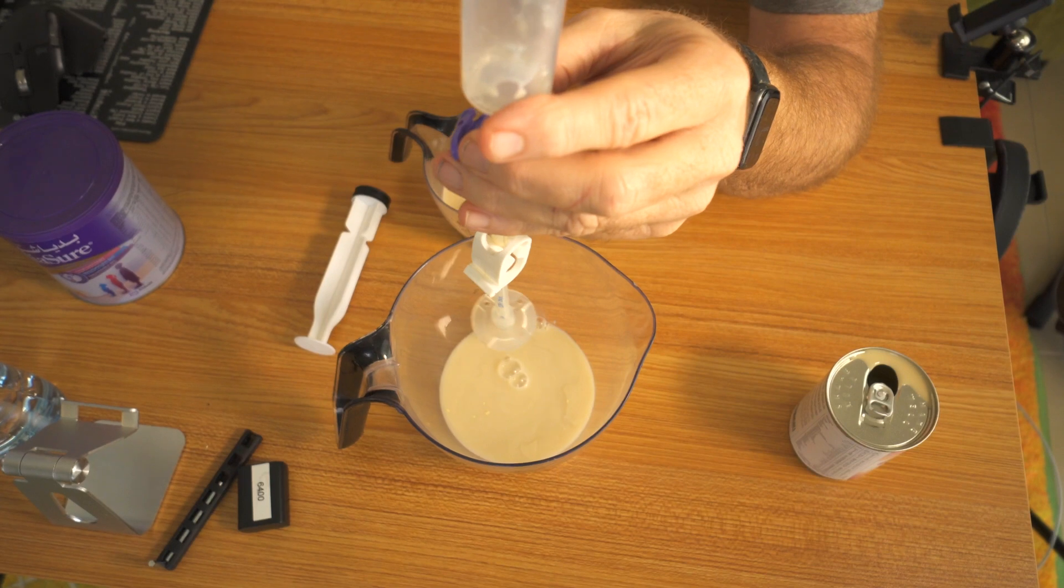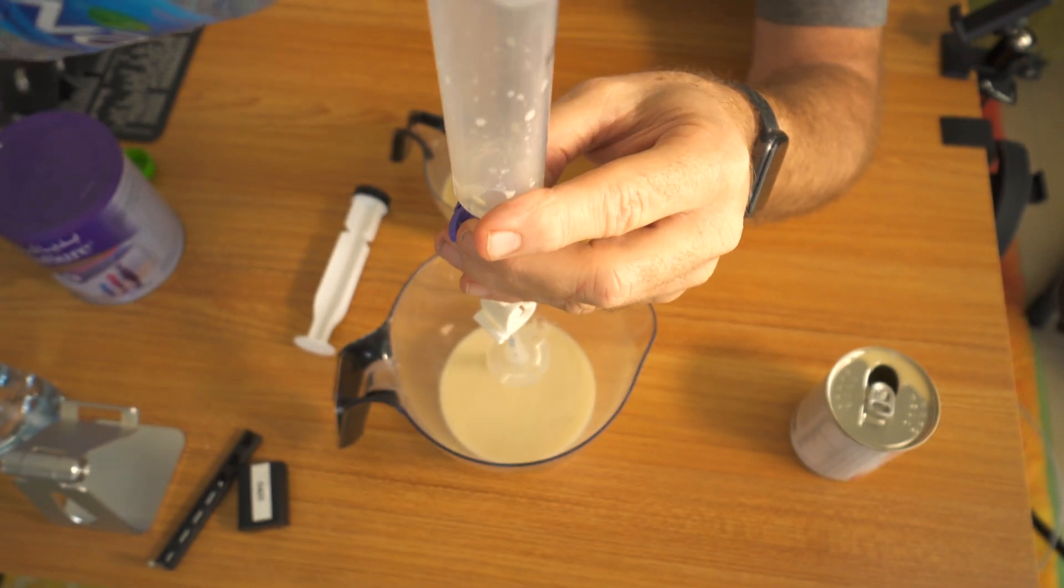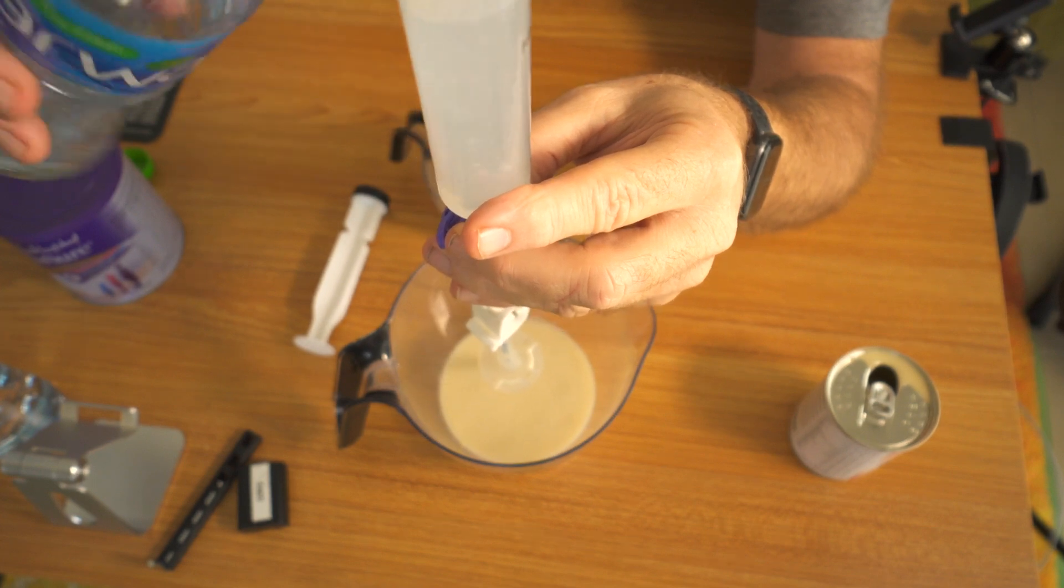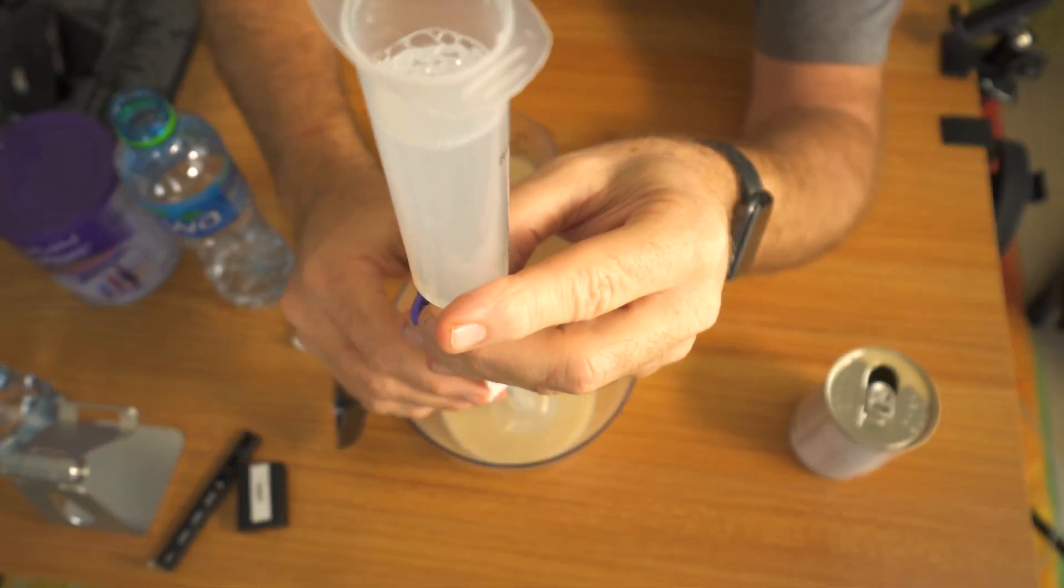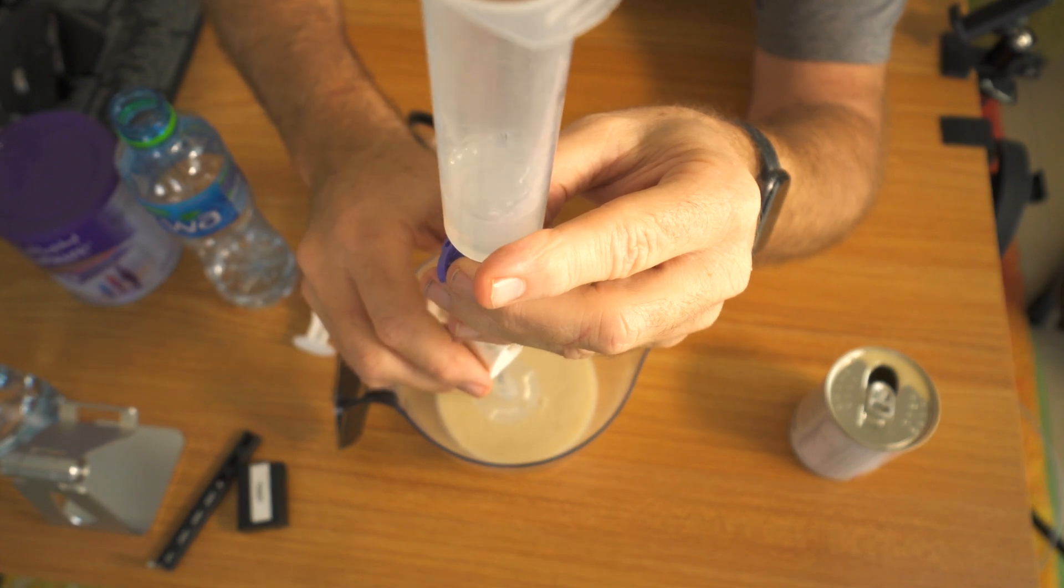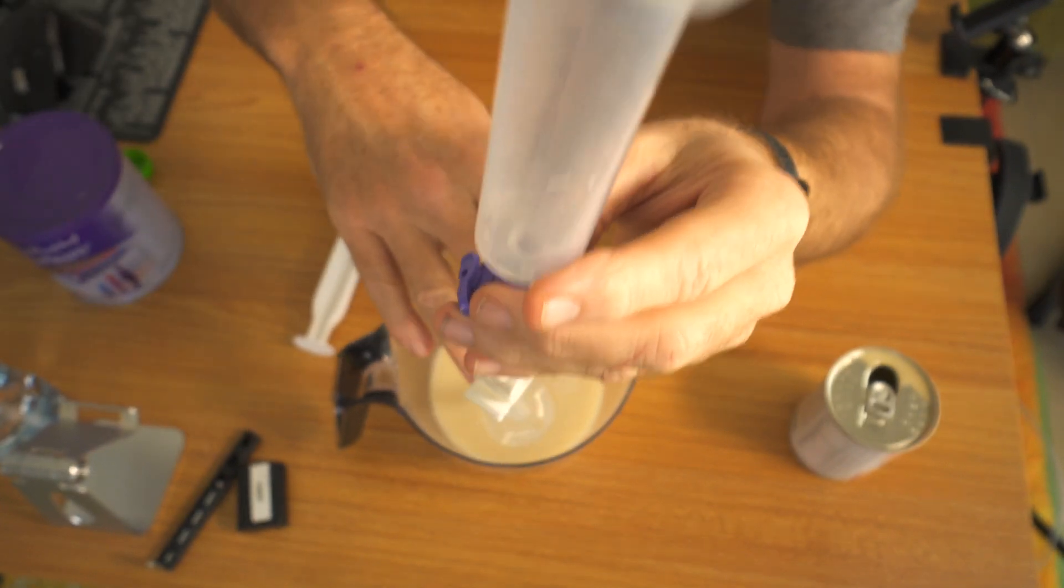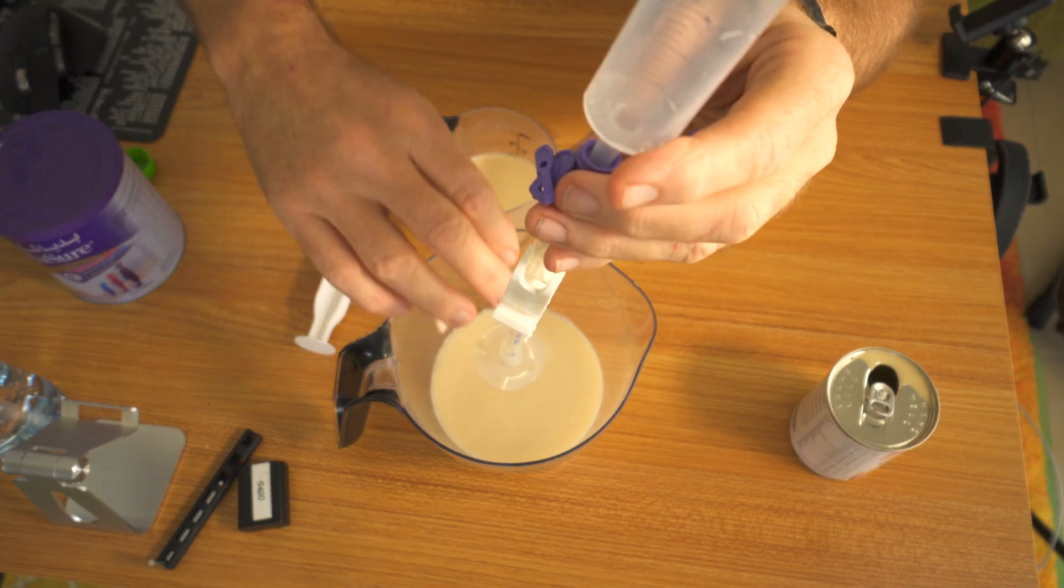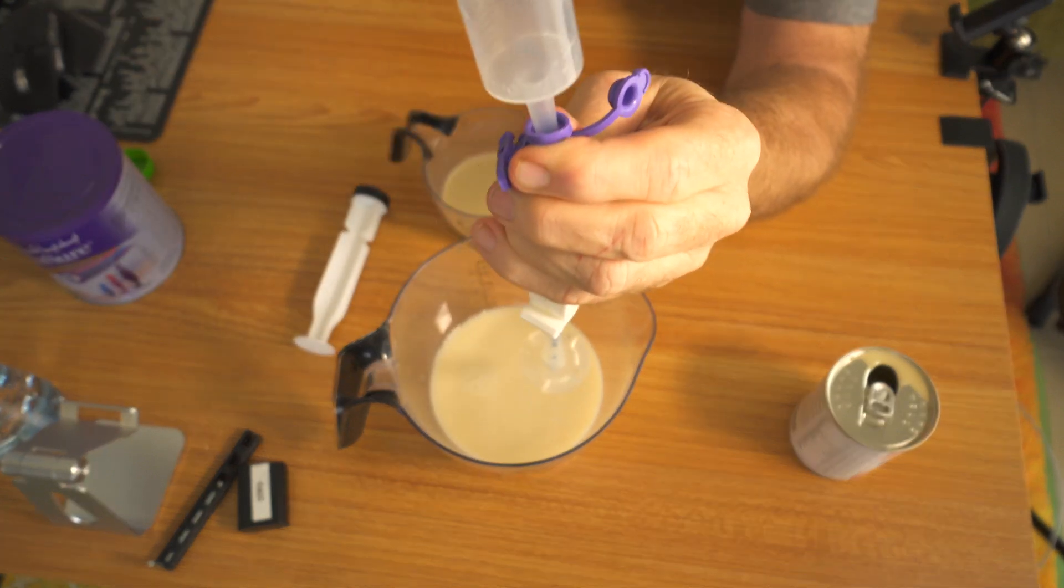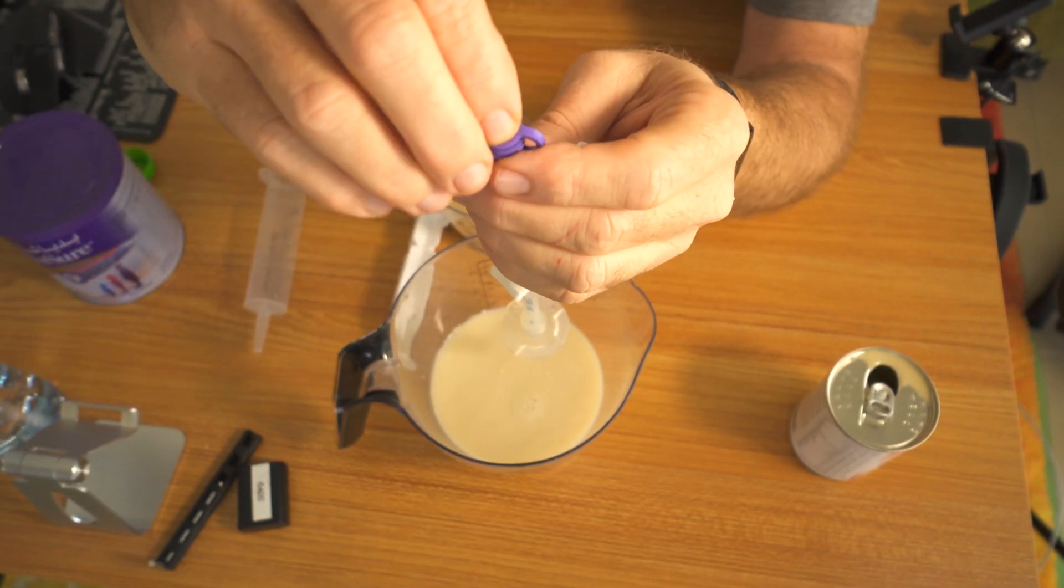The next thing I would do, and this was just for me, nobody ever told me this, is take some water and pour it through, 60 at a time. That way you're not too full. Drain out the water, let it clean out your tube, clean all the food particles out, all the goo and gunk. Because every time you move, the stomach contents will come back up into the tube every time you move if you haven't pinched it off good. Close it.